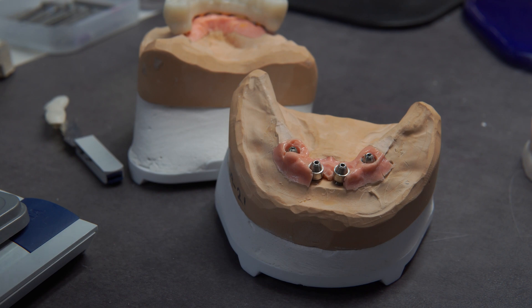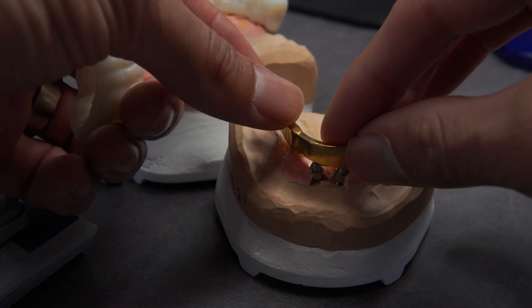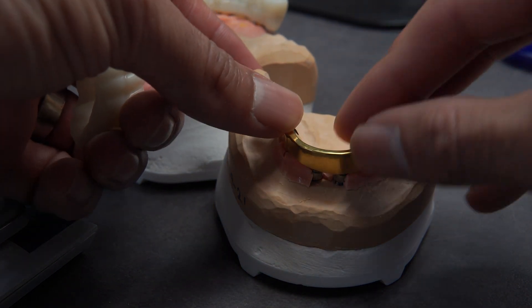A full zirconia without the metal bar — I've had a breakage with that — but a zirconia with a metal bar inside it is pretty robust. Now let's say in five or six years a patient has a problem with the PMMA and it's worn down and needs to be refurbished: it's a lot easier to send the digital file from when those teeth were originally made and have a new zirconia or PMMA made, and you can actually upgrade it quite easily, which you can't do with an acrylic wrap. Having acrylic against the gum is not ideal — it causes inflammation — whereas a highly polished titanium metal bar against the gums is a much smoother surface and causes much less inflammation.